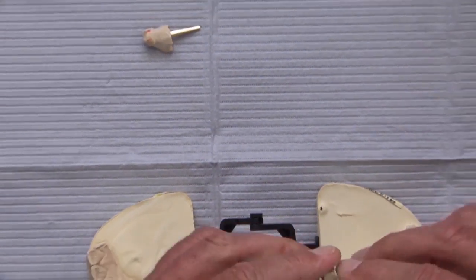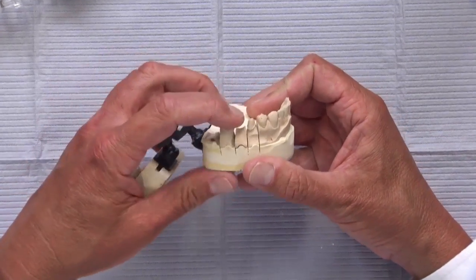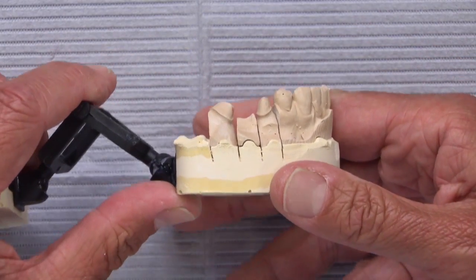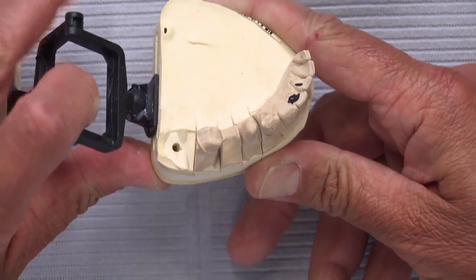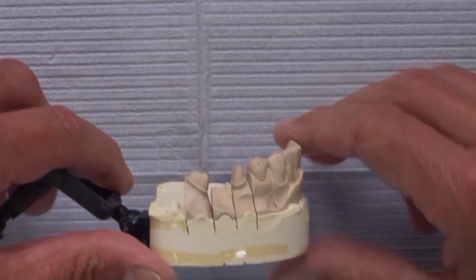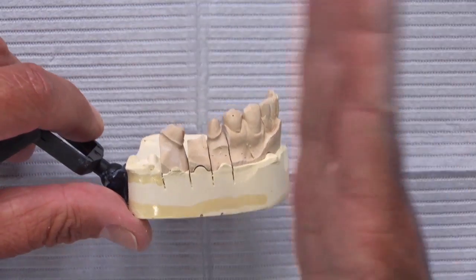Then when it doesn't fit, the doctor can say the lab got something wrong, decide he doesn't want to Mickey Mouse it, and take a new impression — and the patient's usually okay with that. So what have we been doing to avoid these undercuts? With some of our doctors who have scanners — so far mostly a couple of Sirona users — we've set it up so we can actually share their computer screen. When a doctor scans before taking the impression, we look at it live at the laboratory.